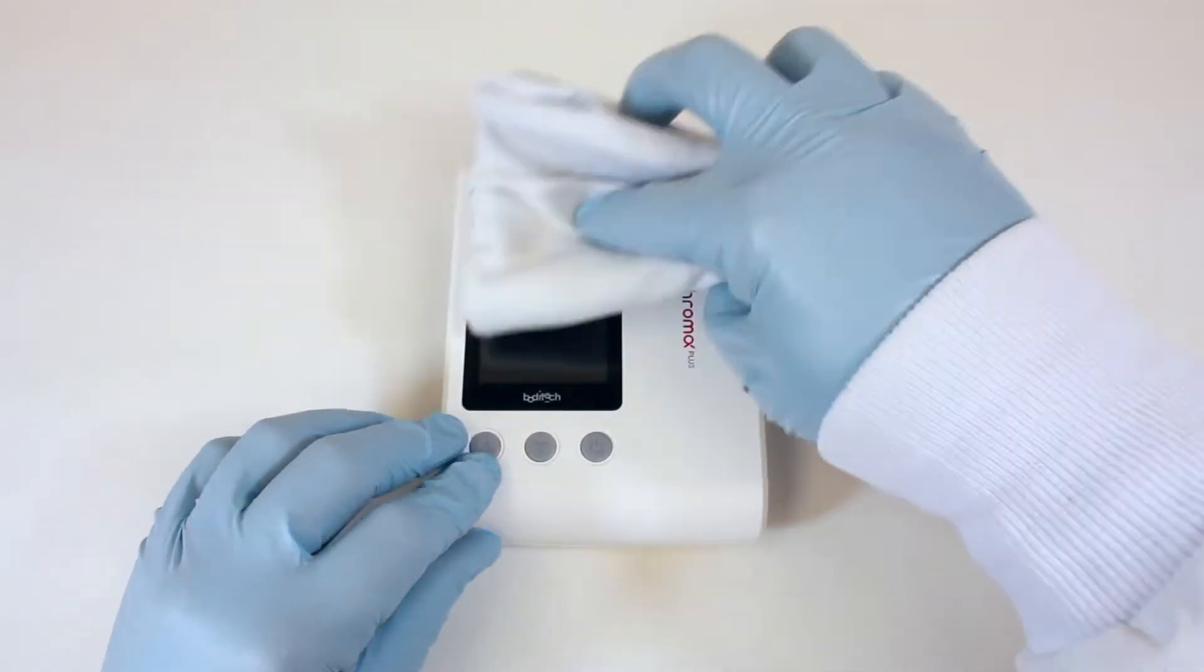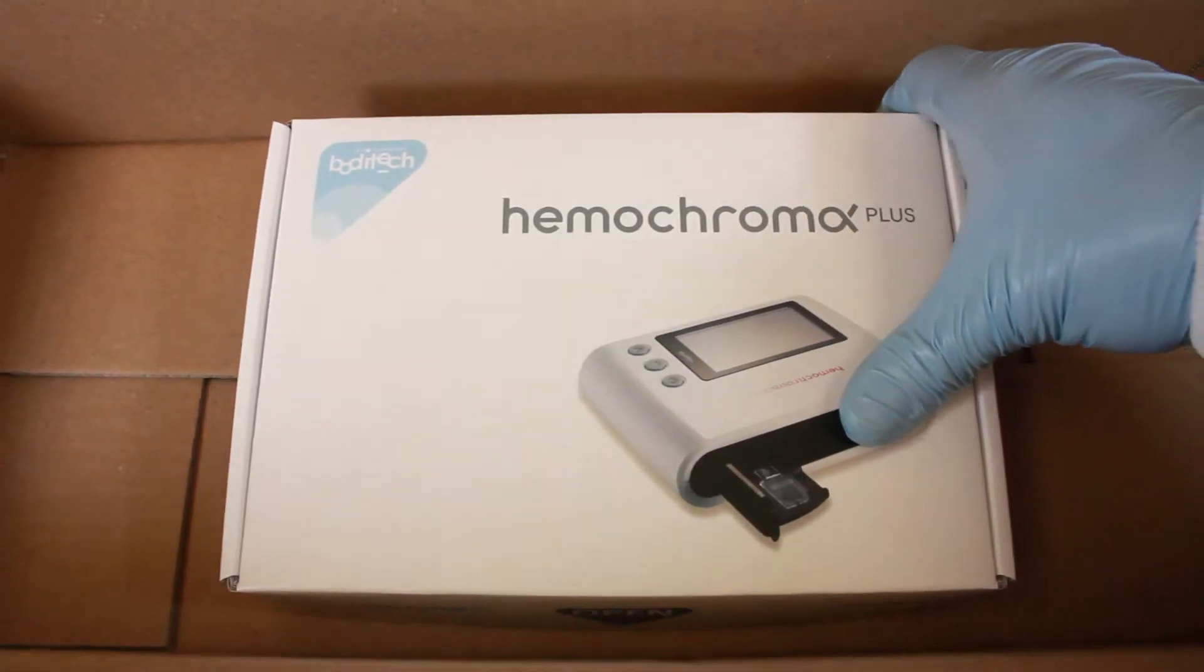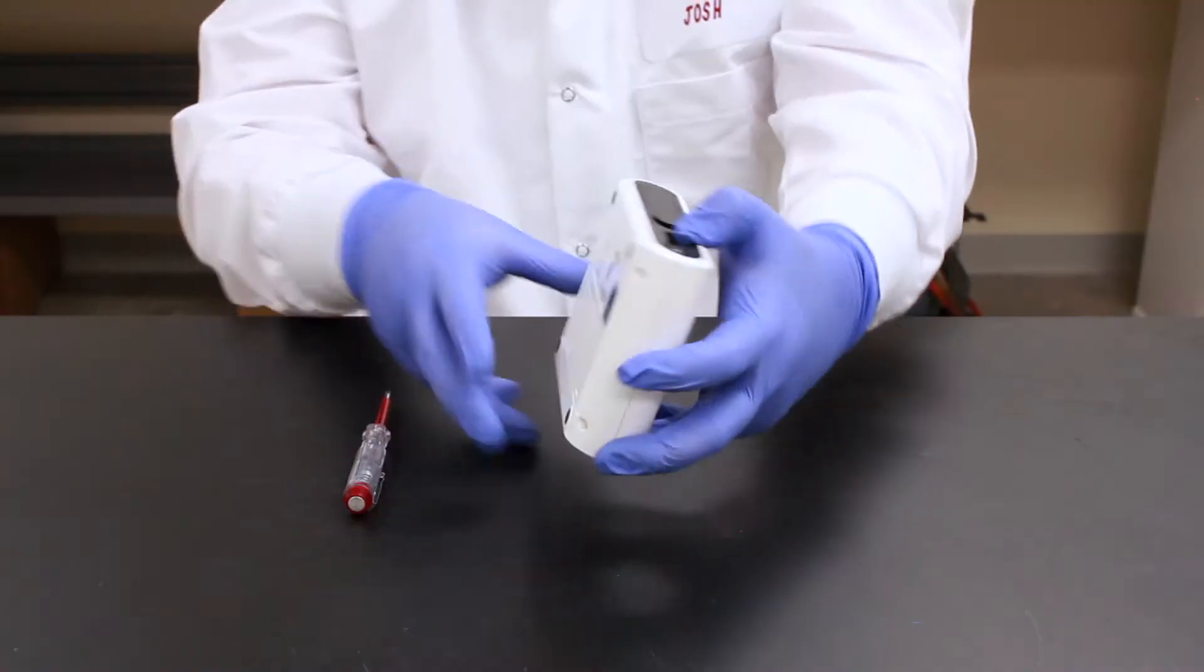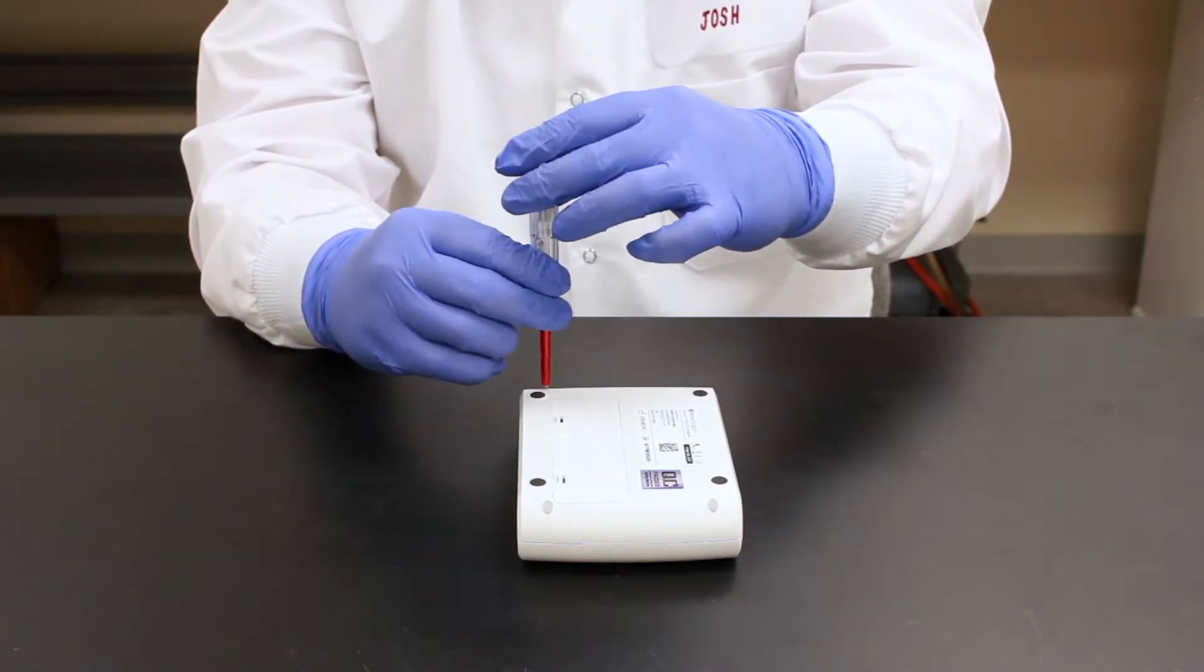Service for Hemochroma Plus Analyzer. No maintenance other than periodic cleaning and disinfecting is required for the analyzer. If it is determined by a technician that service or maintenance is required, a qualified service engineer will need to service your device upon it being returned for maintenance.